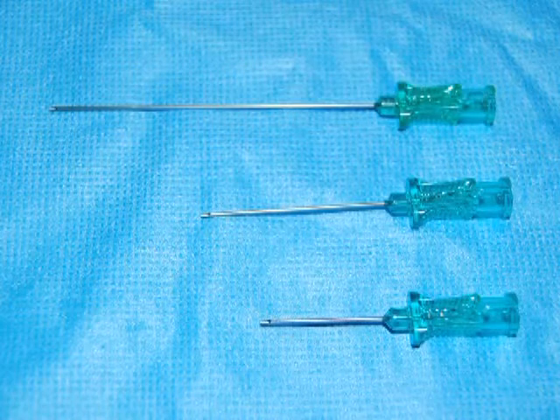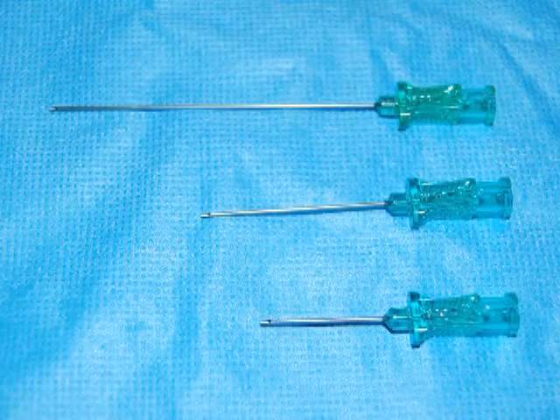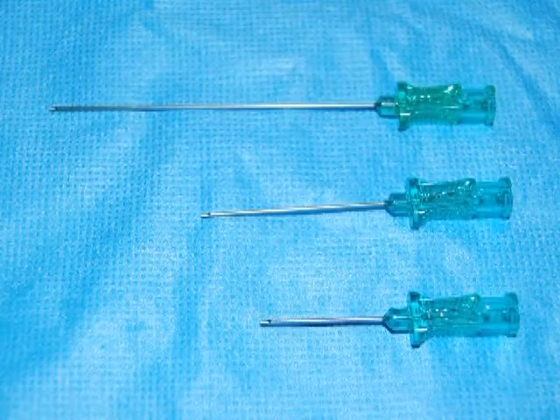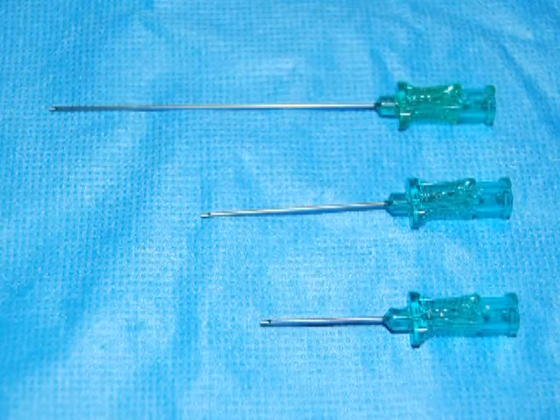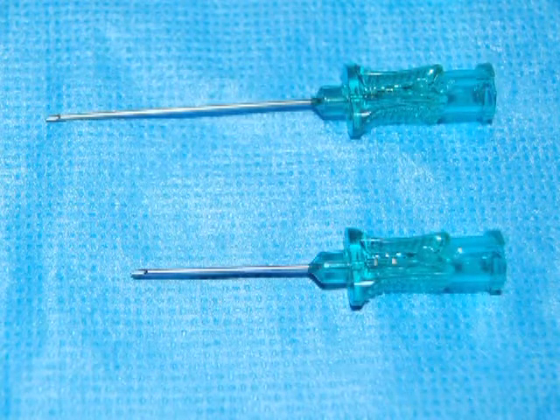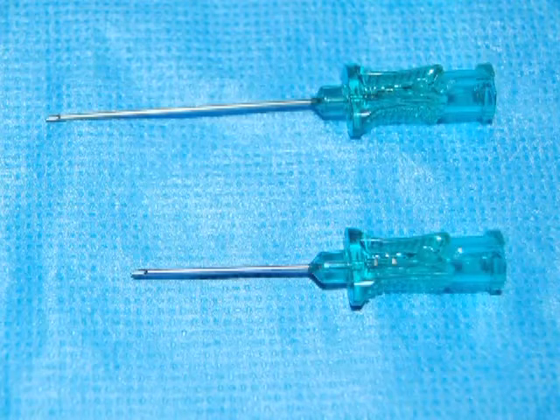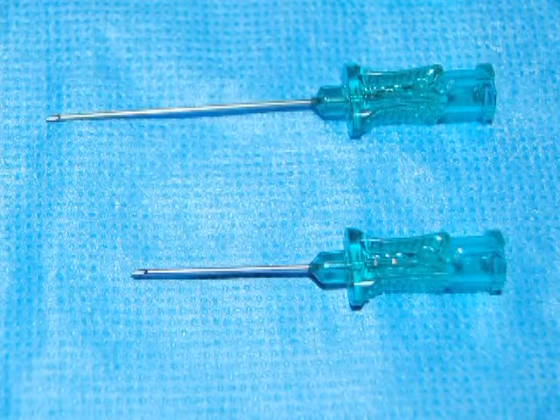The micropuncture needles create a smaller entry hole and less back bleeding is identified. They are excellent for radial access and can also be used for femoral access.